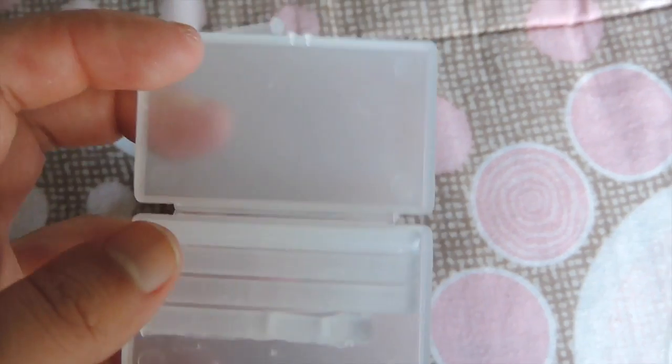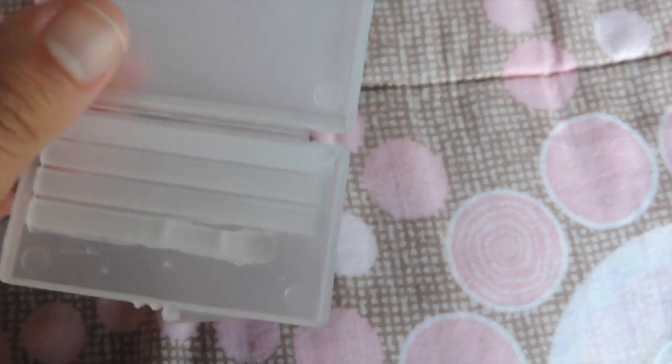When they tighten it, your inner lips — the top and bottom — start to rub on the metal, and your skin starts to tear off a little bit. To prevent that pain, you can get these wax things — just ask your orthodontist and they'll give them to you. You put the wax on top of the metal and it won't bother your inner lips anymore.